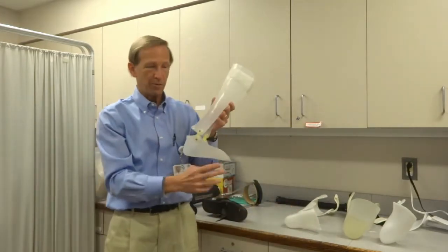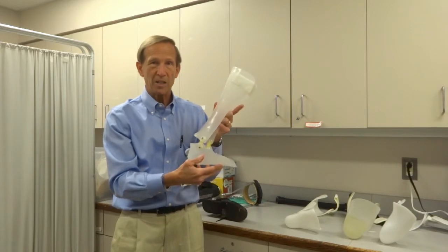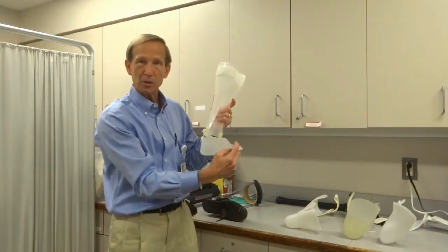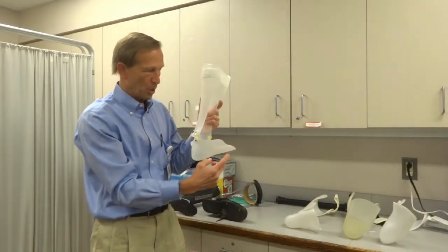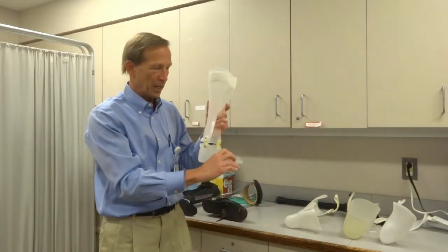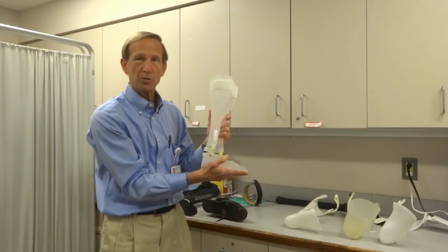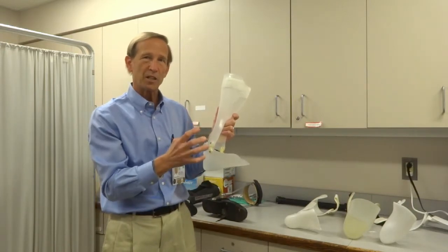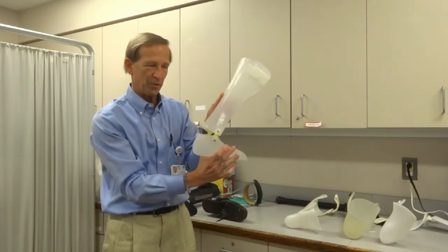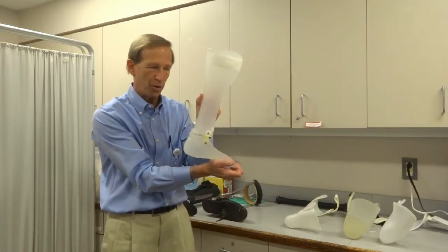Sometimes we want to have a true pivot point or hinge joint on a plastic AFO. This gives us the option of controlling foot drop while allowing a little bit more normal walking because the ankle can actually move. We can also build in the same kind of flange for inversion problems. We can control how much the ankle moves by building up the back — it looks a bit like a fish mouth — and once that closes, it stops the foot from going down any further.